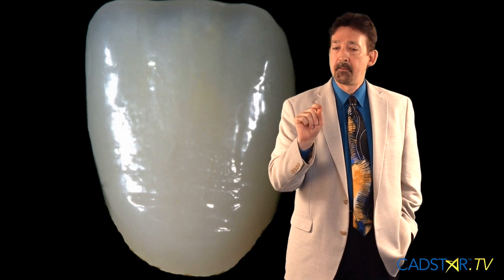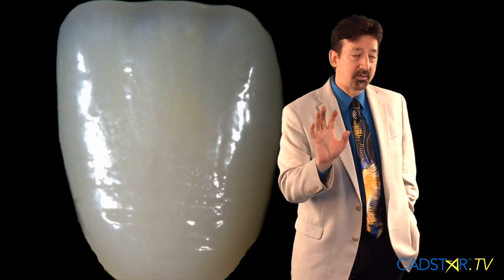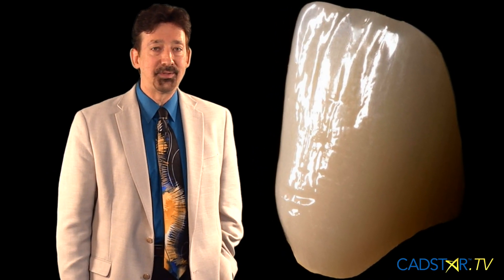If you look at good aesthetics, that really defines it — the light reflection. The light reflection is defined by our finish, which is on top of that nice lobing and that ripple effect that we get on our labial surfaces, and it varies for different people. It's like a fingerprint. But when you learn to master that, you don't have to be a master ceramist to master that with CEREC, because it's in the software. I really like that a lot, and I think we're very blessed to have that feature. So let's talk about it.